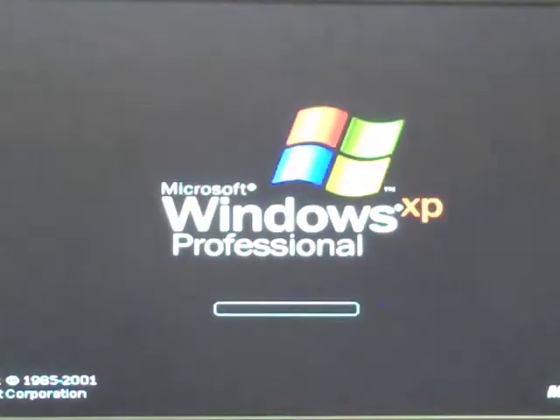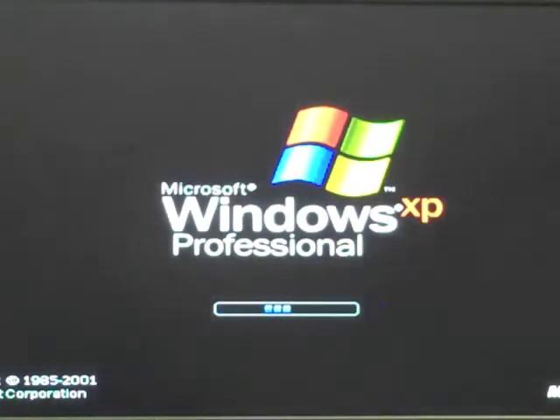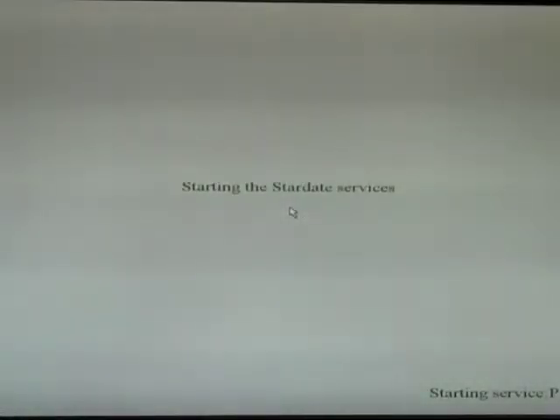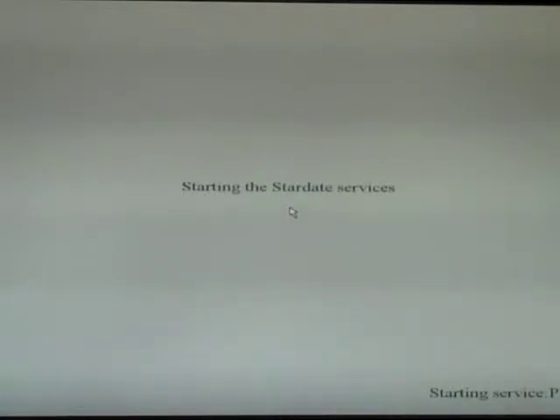Power all components on. When the system boots up, it should automatically enter the Philips patient monitoring software. A properly connected Philips system with no configuration will show each sector completely blank.